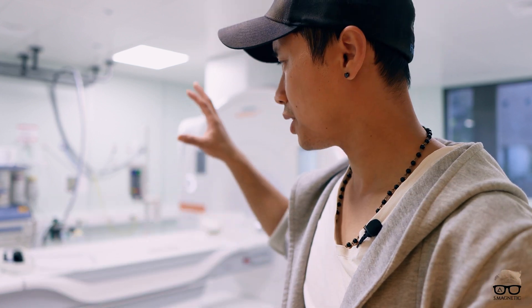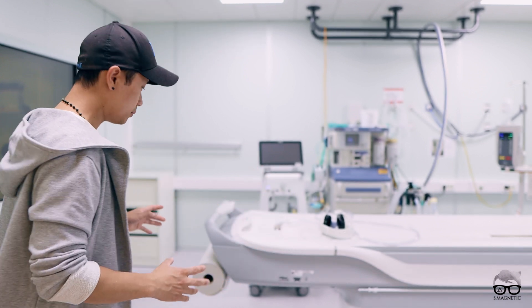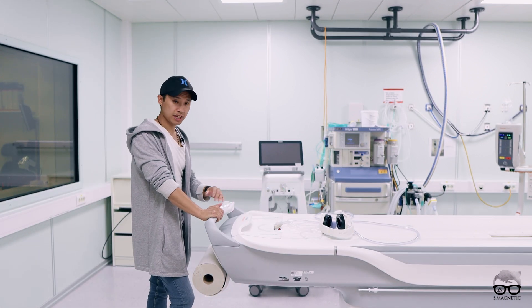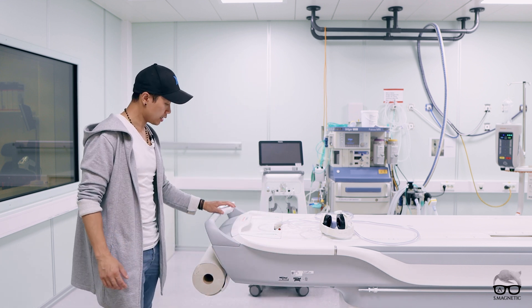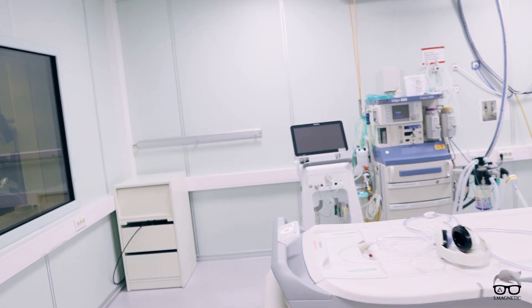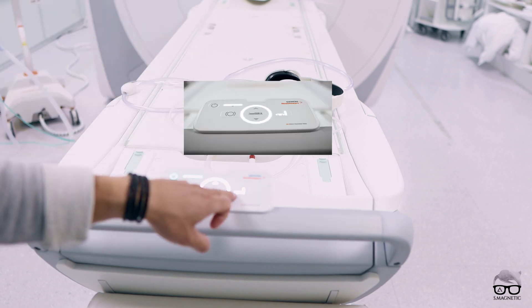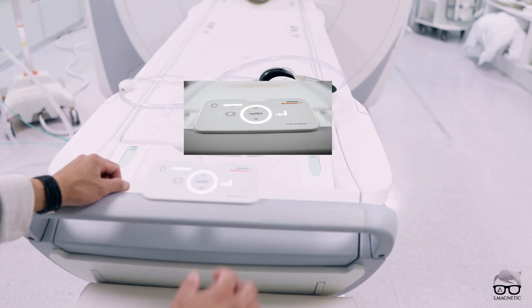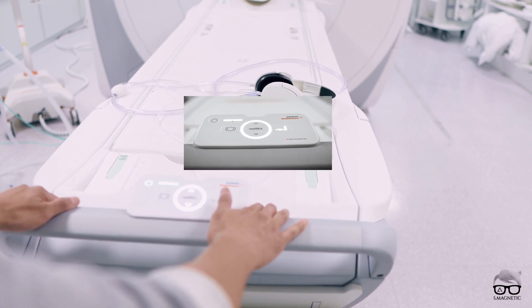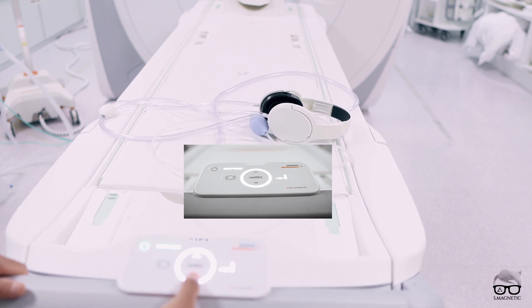One of the big things for me is the table — the table is all new, it's with an engine. I'm gonna walk through it with you guys. So let's check the table. As you can see, the table has an engine built in — you don't have any paddles for up or down, there's nothing extra. You control everything with this one panel. You have the stop button and you can also see on the screen where you can undock it. Just docked the coil, this plug — and now let's undock it. Very easy.